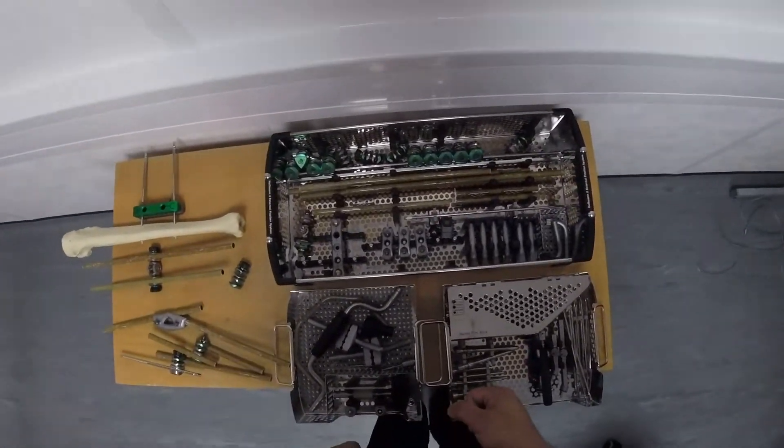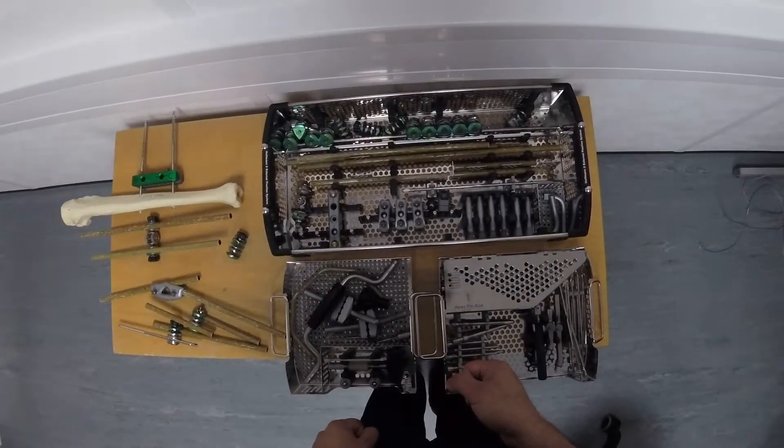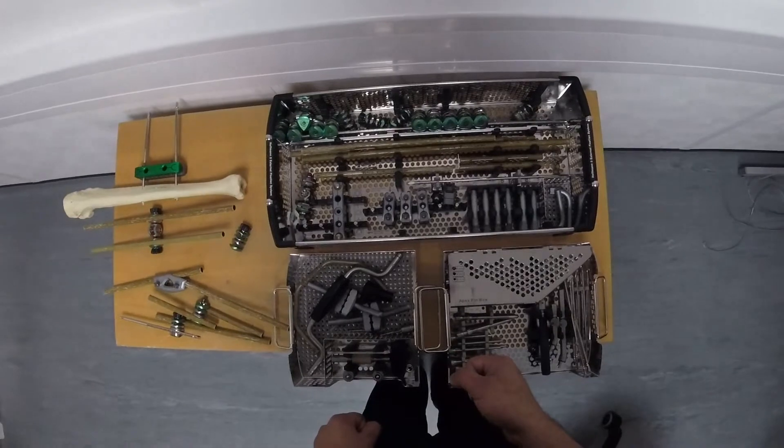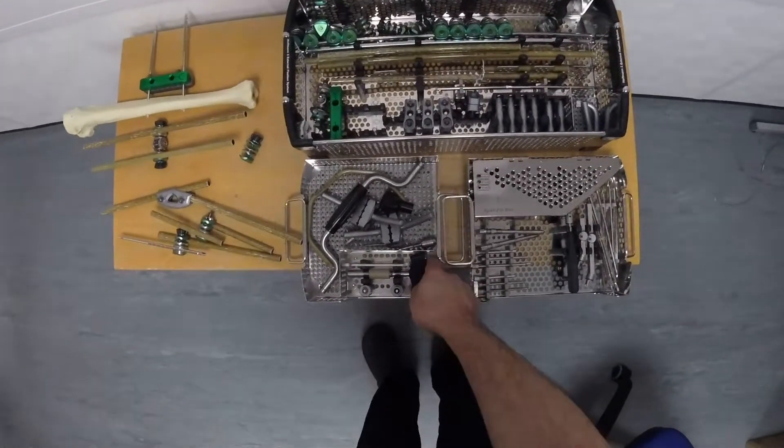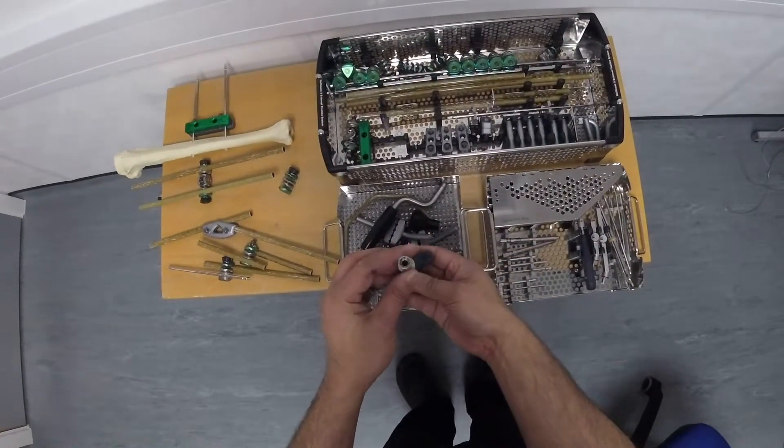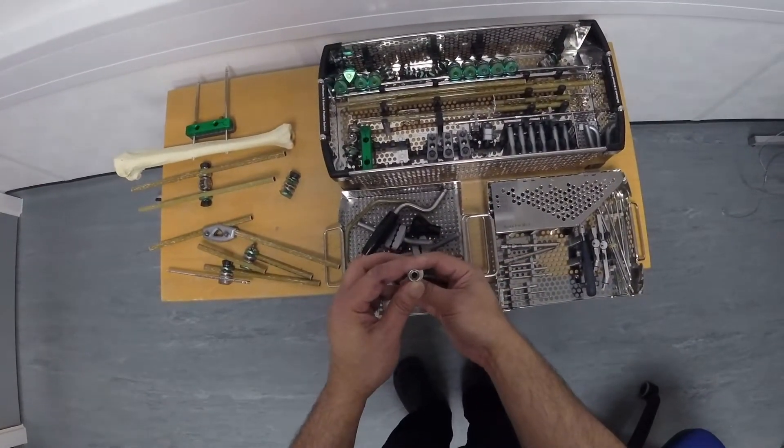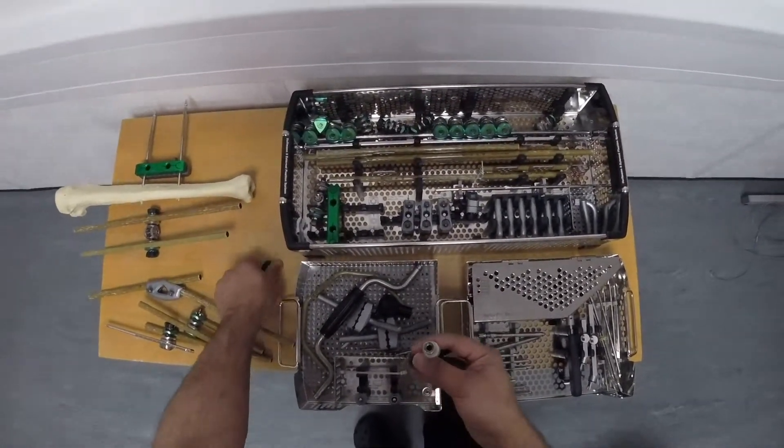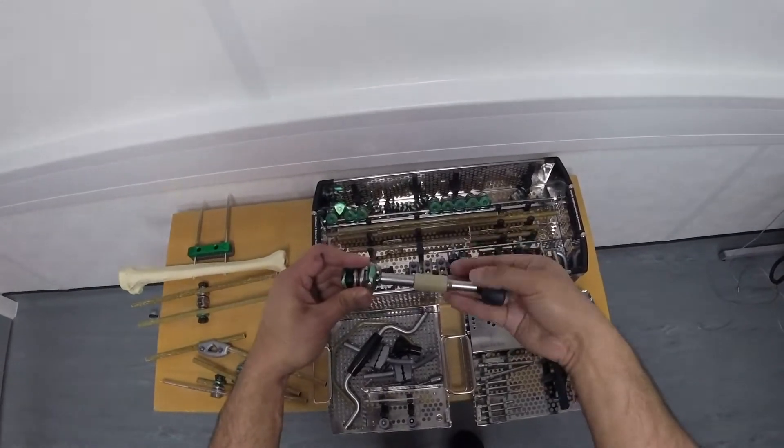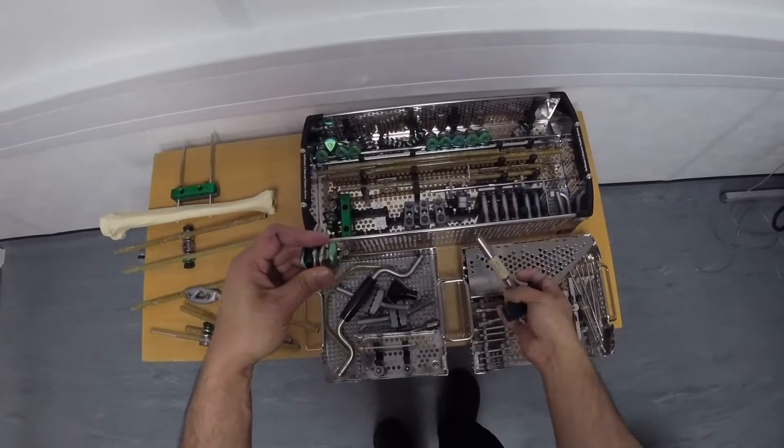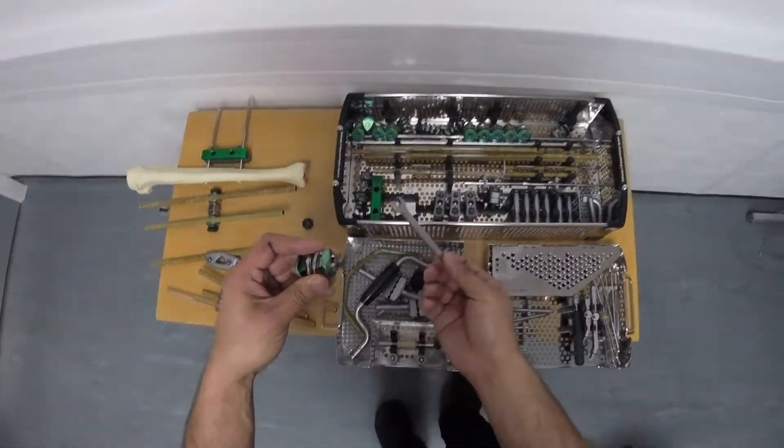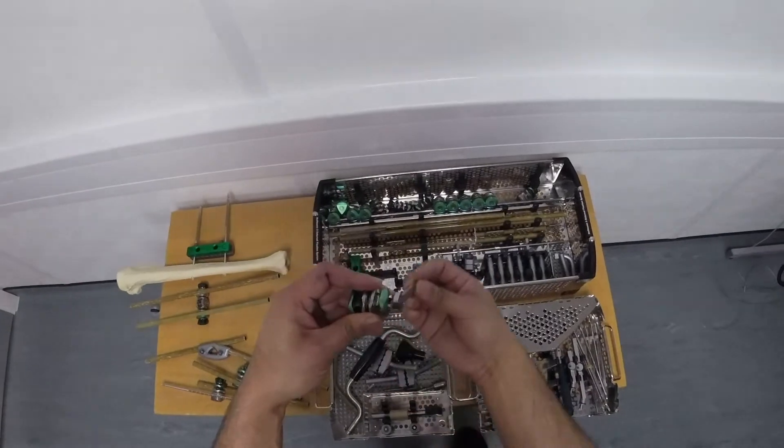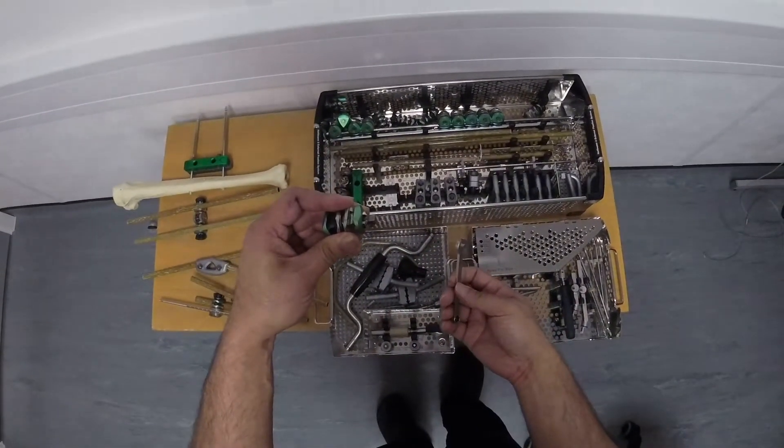Now that we've had a look at the various delta clamps, let's have a look at the other instruments in the set. Here we have a T-Wrench, which has a 7mm space. We can use that in order to tighten our clamp. Sometimes it's not possible to get that into every space. So as well as that, there's also a wrench. The wrench is 7mm. That can also tighten our clamp up.